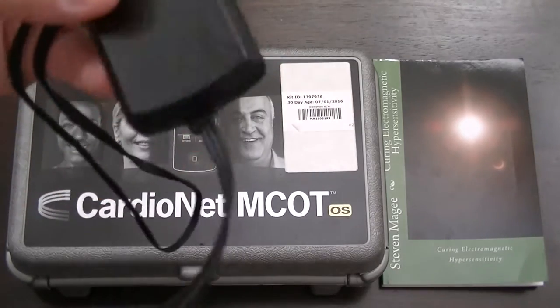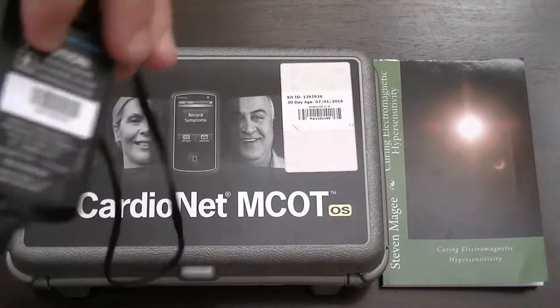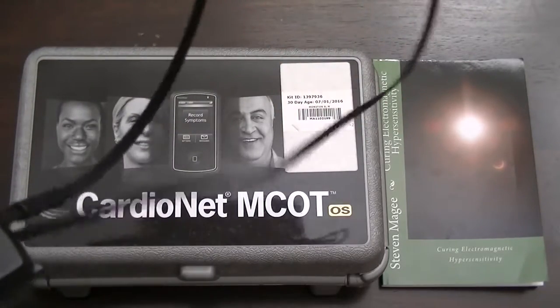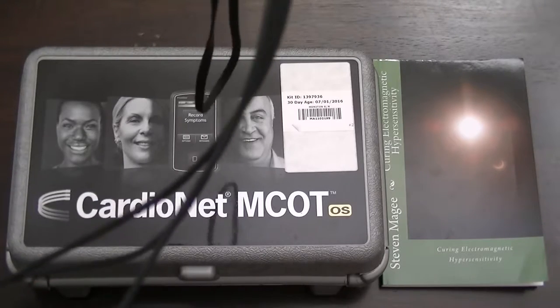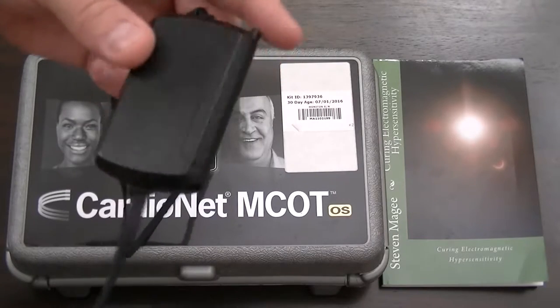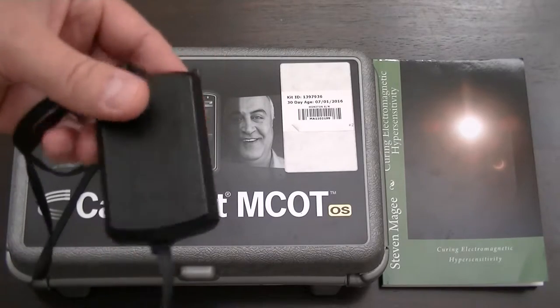It's in two parts. This is the part that connects to your chest and has a little lanyard, and you put that around your head and your neck and then the three wires go out to your chest. I'm actually wearing this right now. I have three electrodes on my chest. This is fully functional — it has a battery in it and it's transmitting.